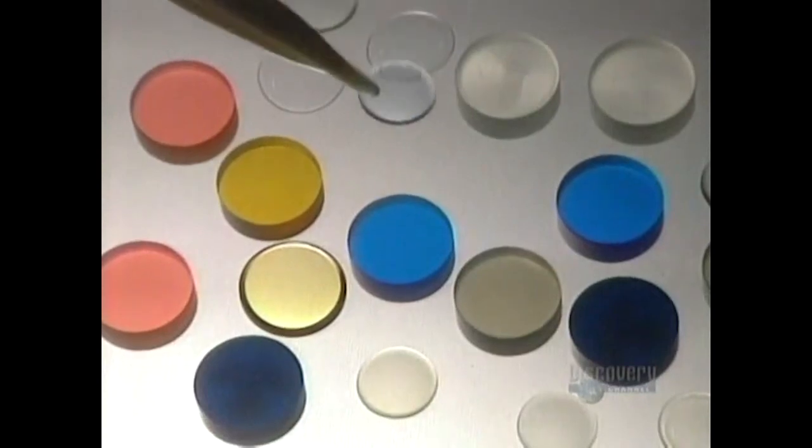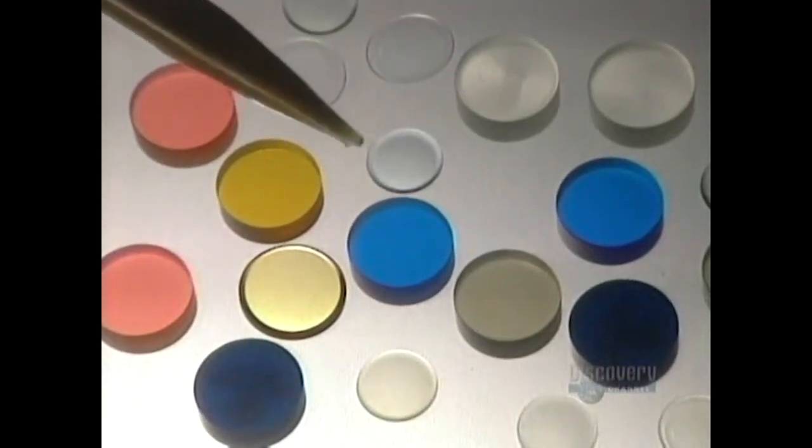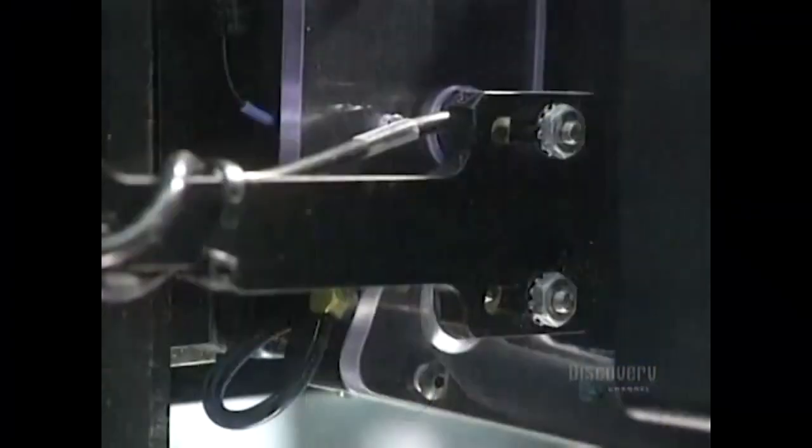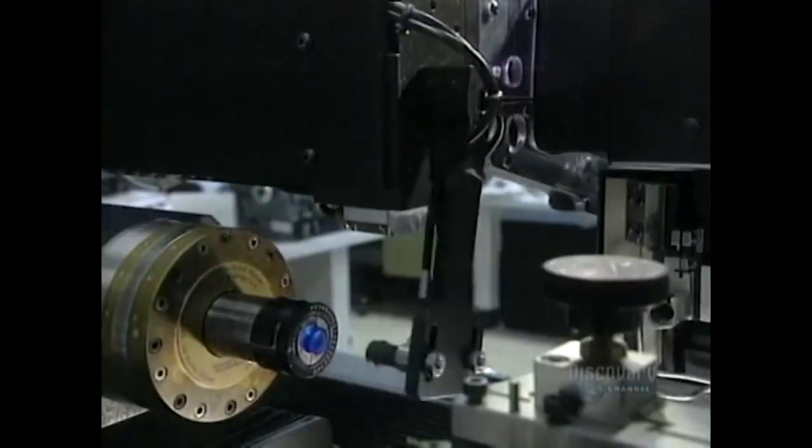Contact lenses have been in existence for over a century. At first completely rigid, they have now become gas permeable and as flexible as gelatin.